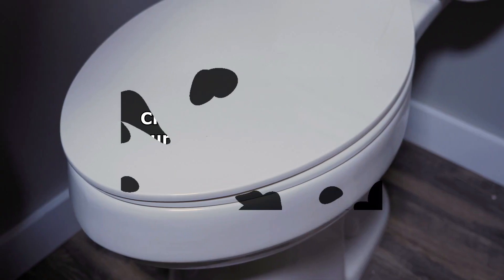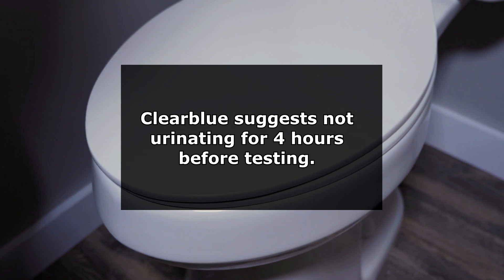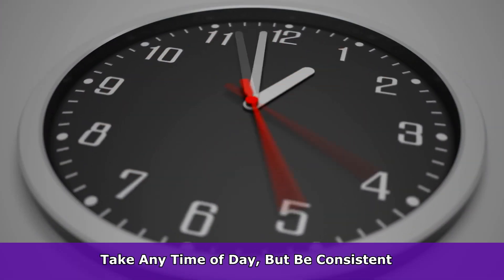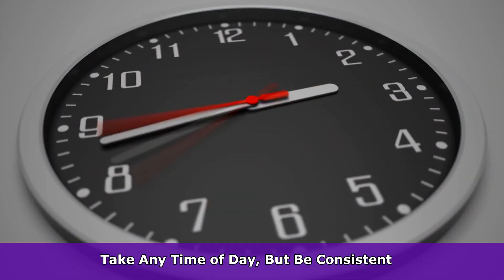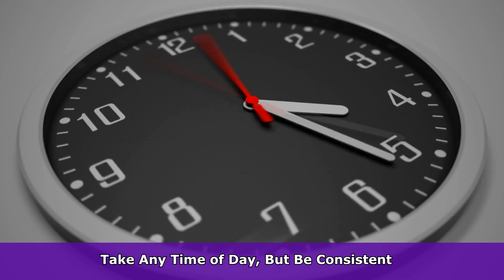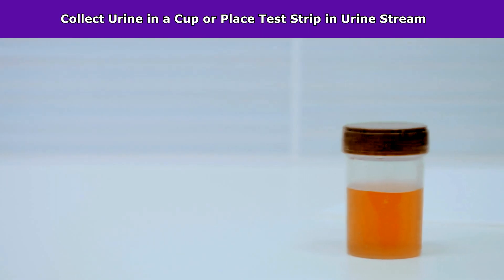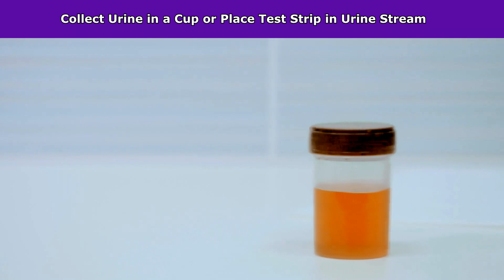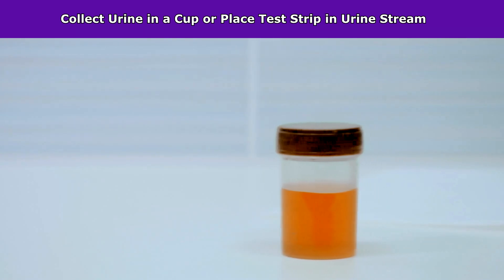Clear Blue suggests using it at least four hours after urinating, and you can take it any time of the day as long as you use it at the same time each day. When you're ready to collect your urine sample on the day of your test, I found that it's easiest to collect the urine in a cup.